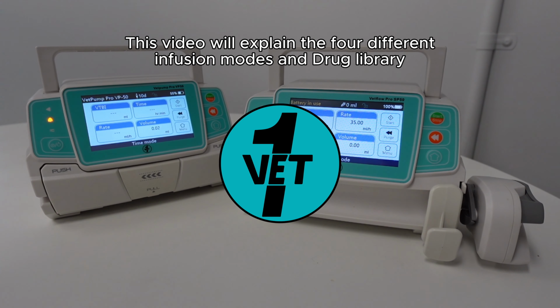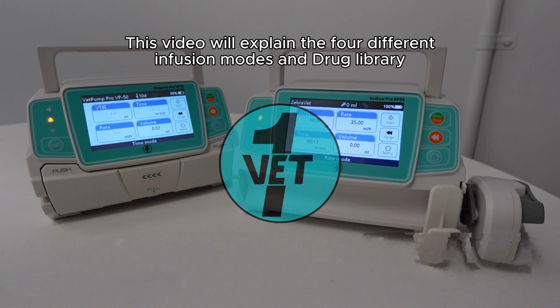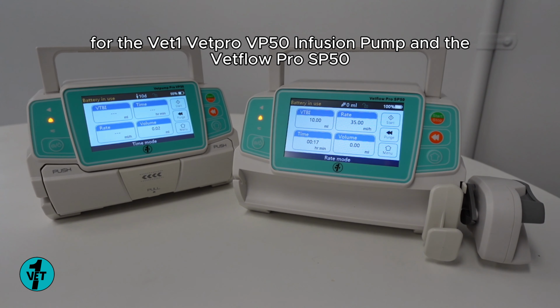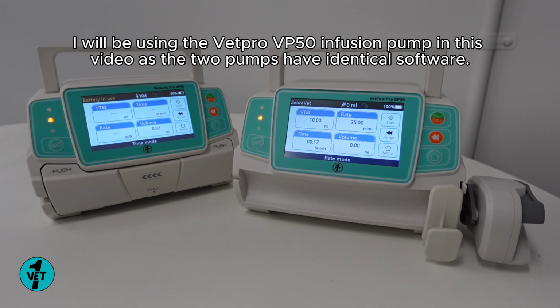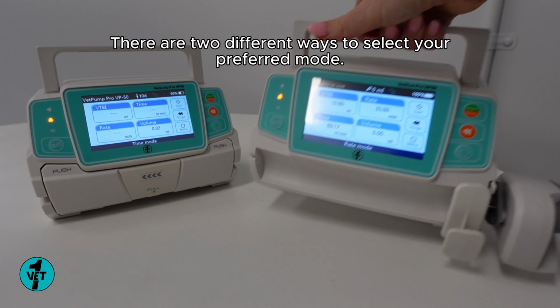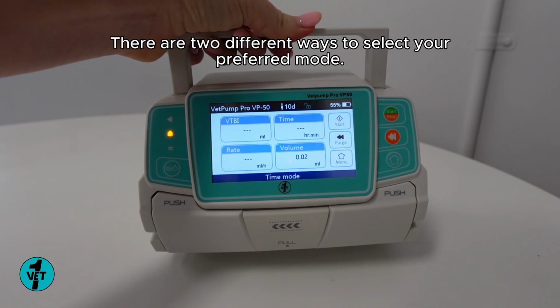This video will explain the 4 different infusion modes and drug library for the Vetpump Pro VP50 infusion pump and the Vetflow Pro SP50. I'll be using the Vetpro VP50 infusion pump in this video as the 2 pumps have identical software. There are 2 different ways to select your preferred mode.